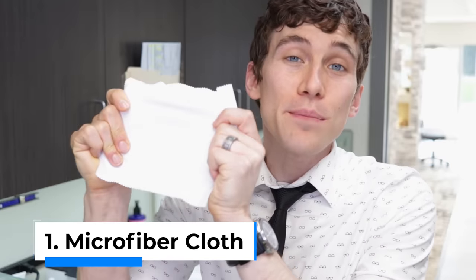So when it comes to cleaning your glasses, you want to make sure you're doing it right because we see a lot of funny stuff coming into the clinic. I want to make sure that you're taking care of your glasses so you don't scratch or damage them.